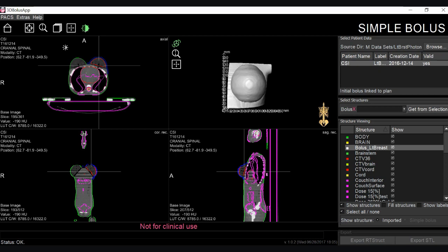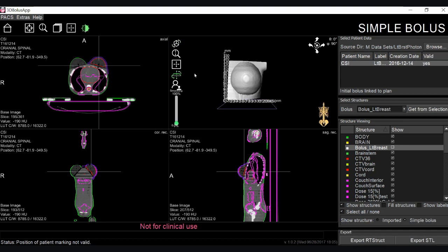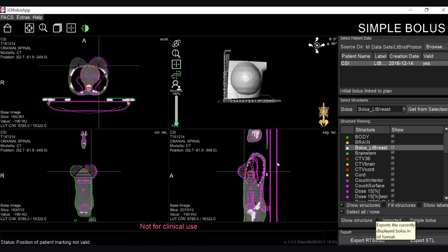After the import of the CT and DICOM information, the user can select from the drop-down list the structure they wish to print. Editing tools such as a cropping plane to ensure a flat surface with the print bed as well as smoothing are available in this editing feature. The user can then toggle between the imported bolus structure and the edited bolus structure, export the bolus as a DICOM structure for viewing in the TPS, or simply export as an STL for printing.